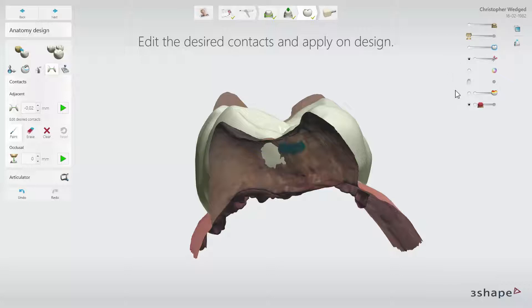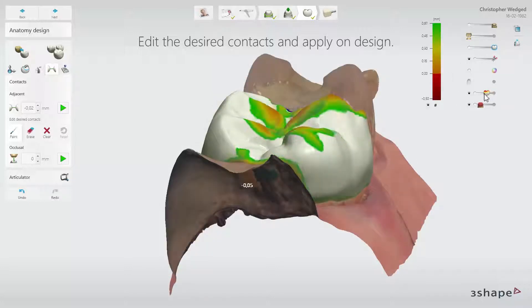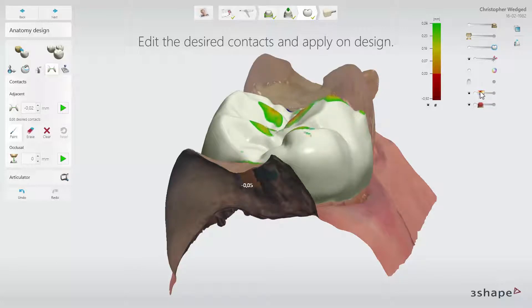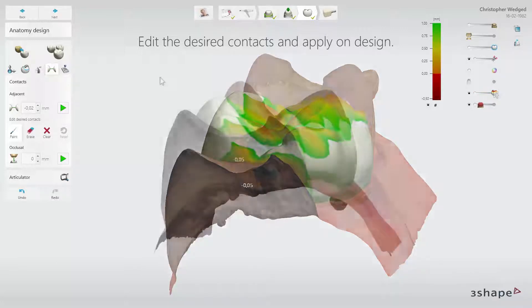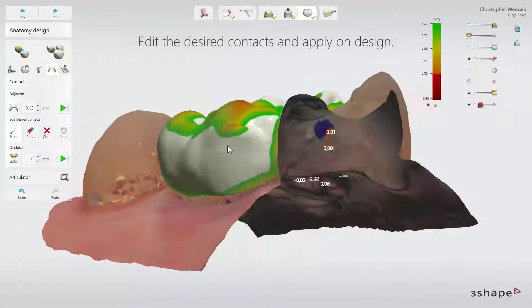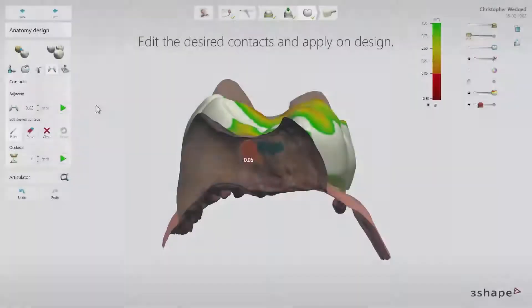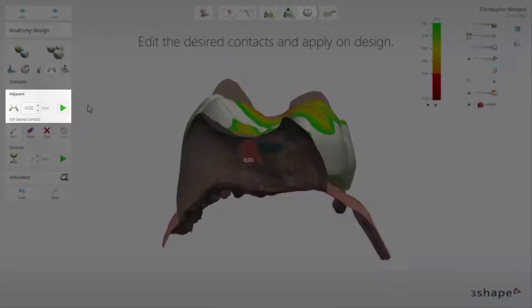Click the Show Distance Map tool to see the contact points. The values on the map can be modified by slider. Now you can see the current contact points with their range and value. Both parameters can be modified using the Adjacent Contacts tool to obtain desired contact points. The software comes with predefined contact values for the chosen material and milling machine.